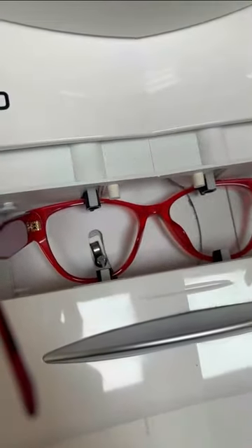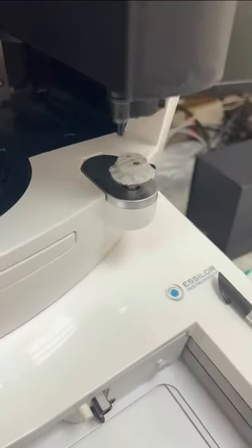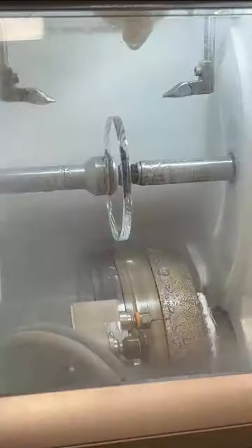First, the optician is going to trace out the frames to get the lens shape. Then he's going to put the lens in the scanner, and our good friend Chuck is going to go right on top of it. Then we put it in the cutting machine and let it do its thing.